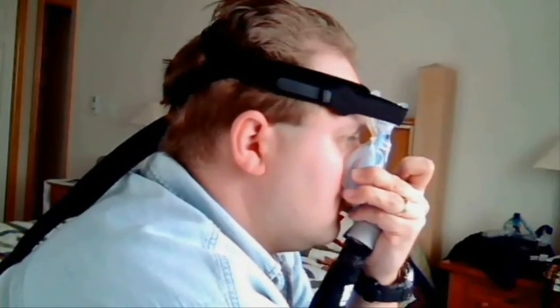I've seen it other places and this is what they try to do with the inflation portion of an outer seal. But these two masks right here, they have it 100% right. You'll never get this active with it strapped on, but I'll tell you what — that's good stuff right there. Thank you.